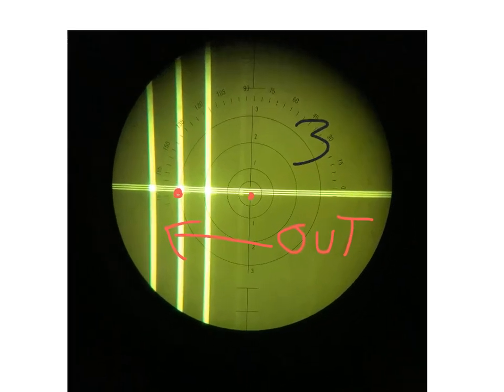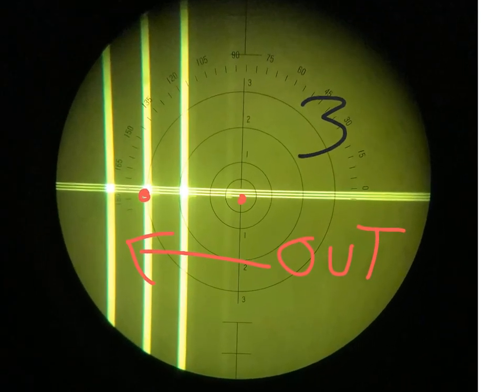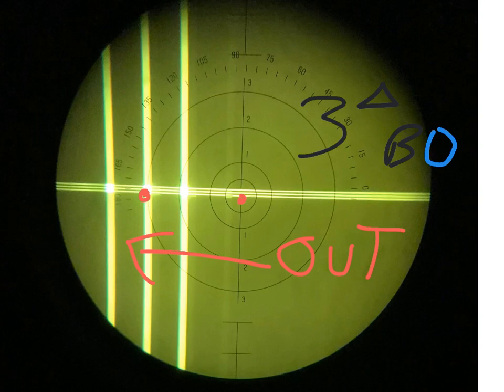Because the target shifted three prism diopters to your left, it's three prism diopters base out. Let me write that in a different color. Three prism diopters base out.